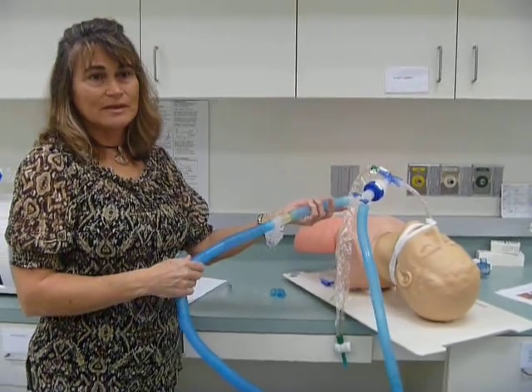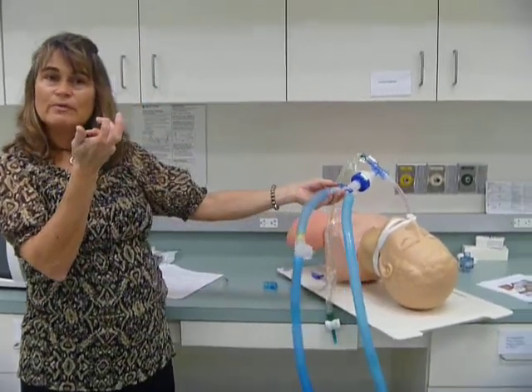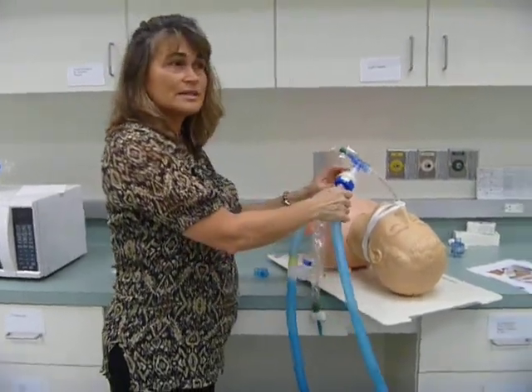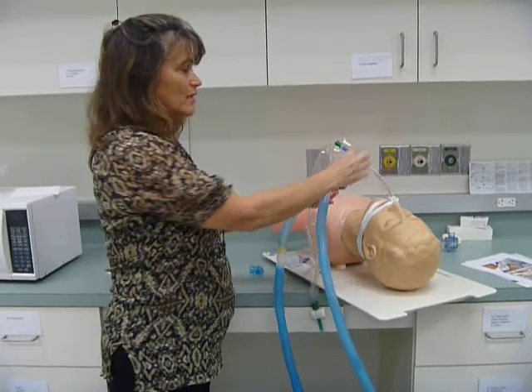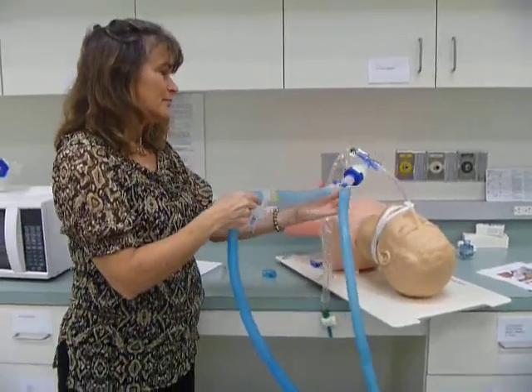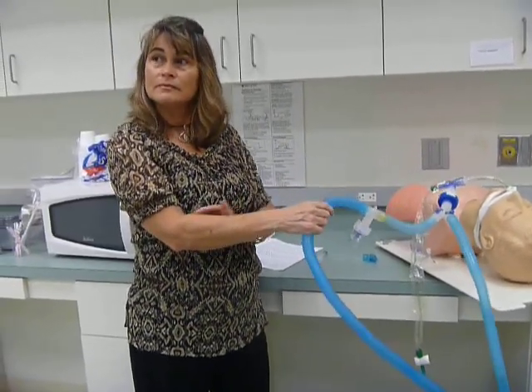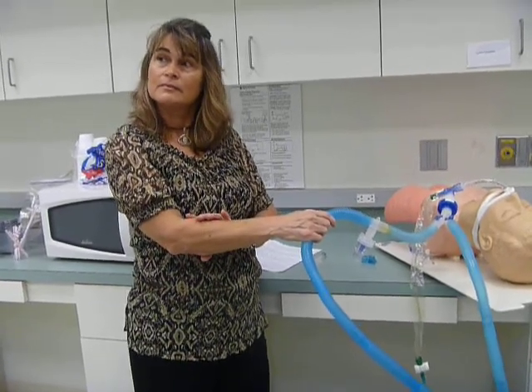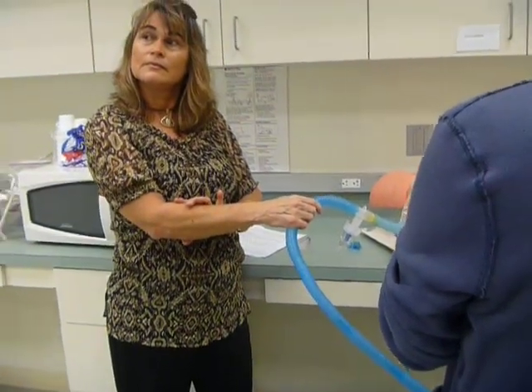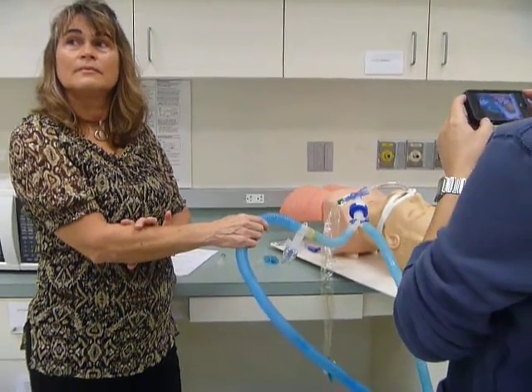Is this what they're using in the hospital now? No. Have you seen the HME where you can switch it from aerosol to HME? No? So they're using an HME that you can't switch back and forth, and then they're putting the treatment right at the endotube, right? So, I think we can tell them what's better, because this is what we're doing in the hospital. We can come up and say, you know what, the patient will get more medication if we do it that way than to put it closer to the patient. So, what can we do in that situation?